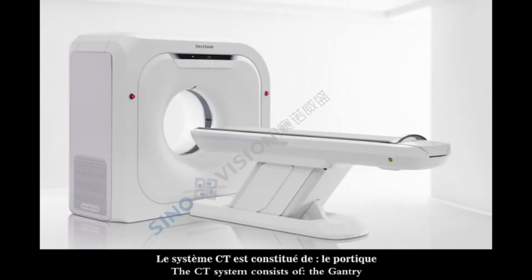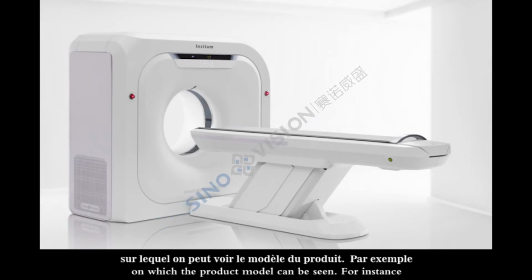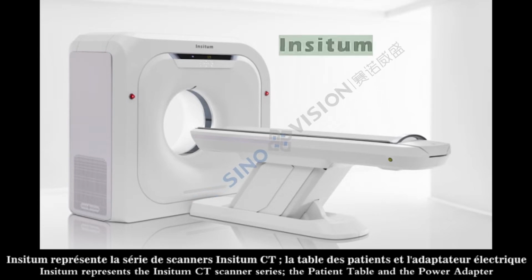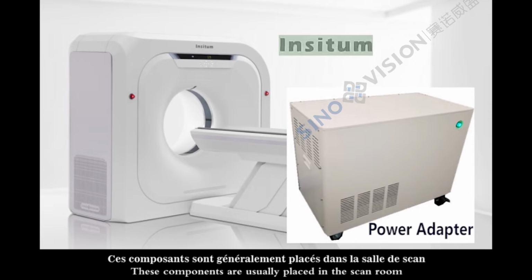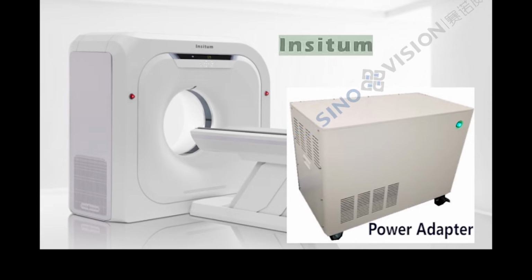The CT system consists of the gantry, on which the product model can be seen. For instance, Insitum represents the Insitum CT scanner series, the patient table and the power adapter. These components are usually placed in the scan room.